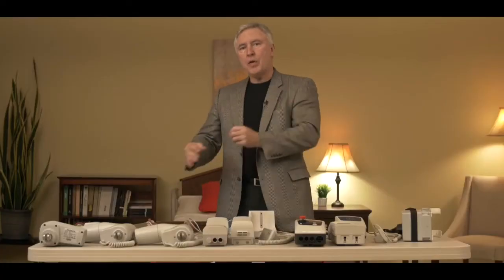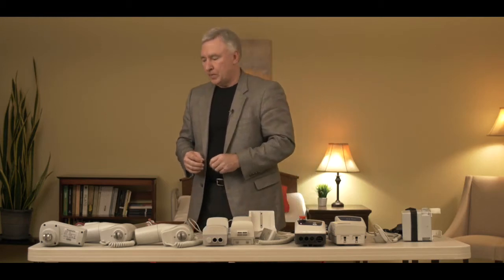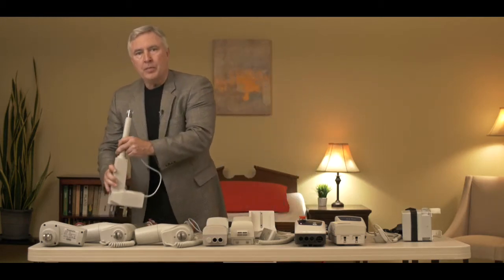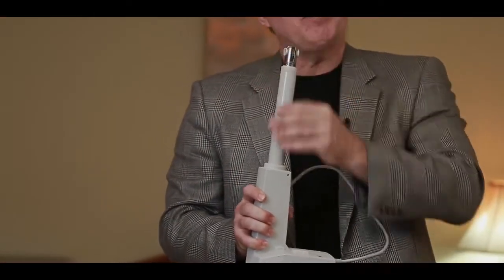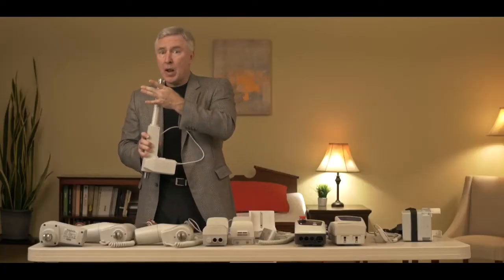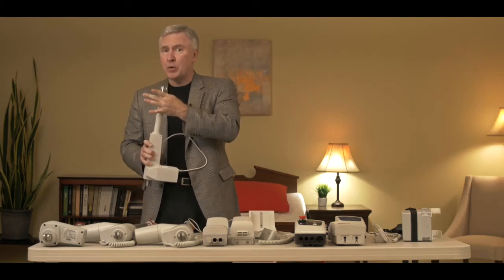So now let's move over to the actuators and describe those. The first style of actuator that you may have looks like this. You notice there's nothing here at the top of it because this particular actuator does not have manual emergency lowering.